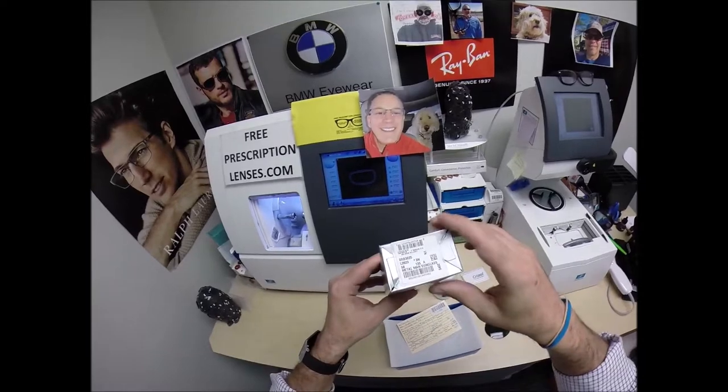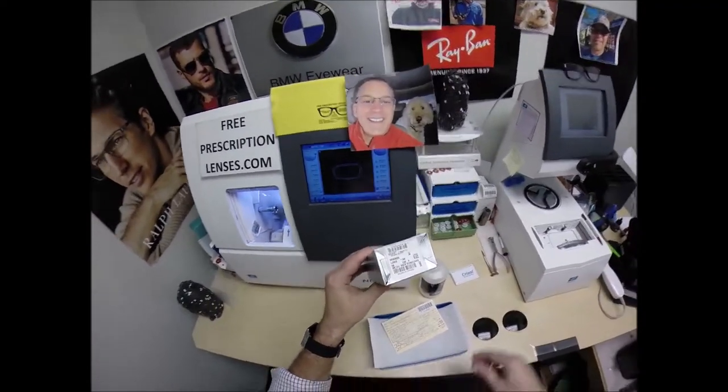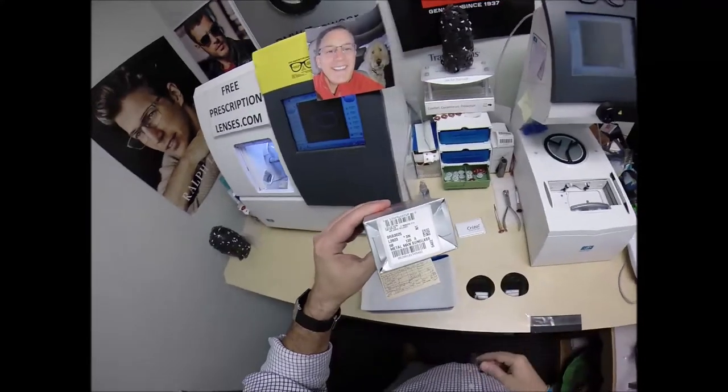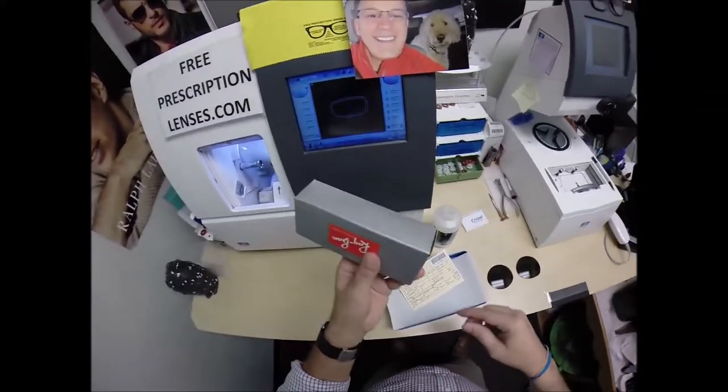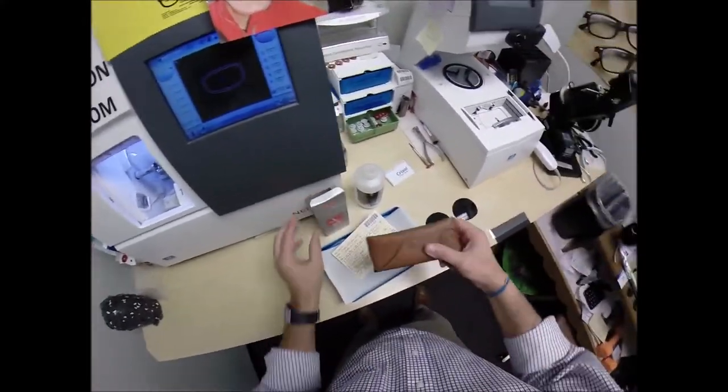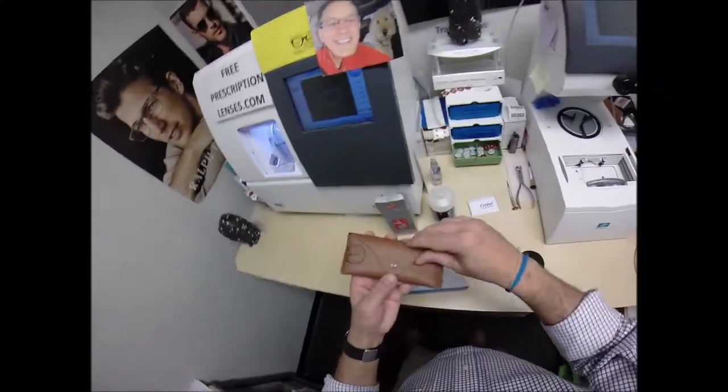I don't know why they put them in the metal man sunglasses. More women now are wearing this than men. Traditionally this was a men's sunglass, but now a lot more women are wearing it than ever before.